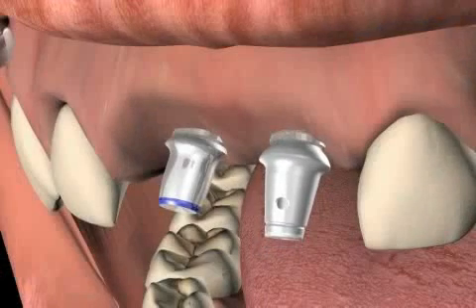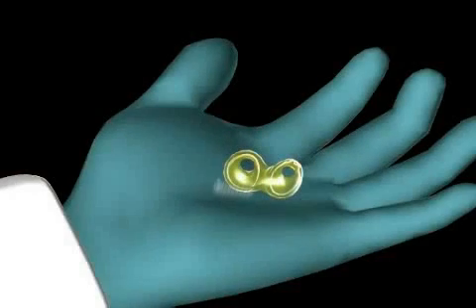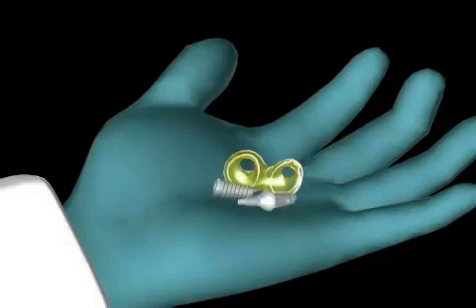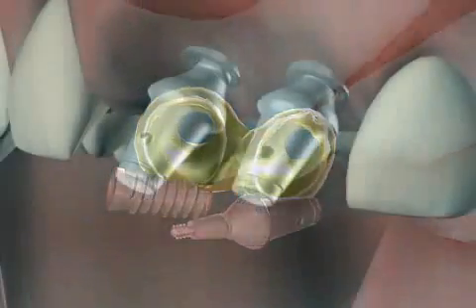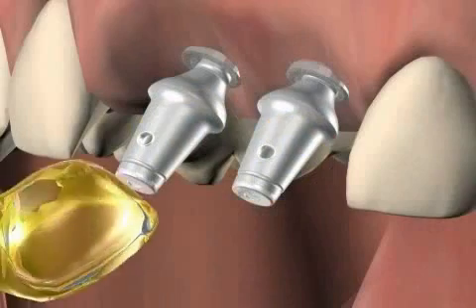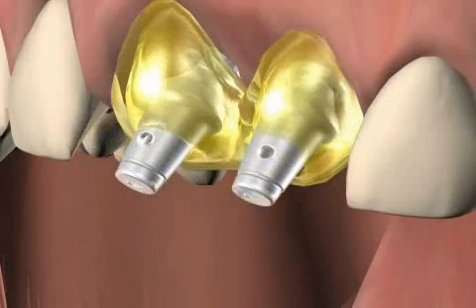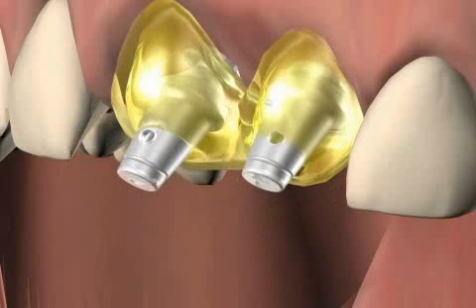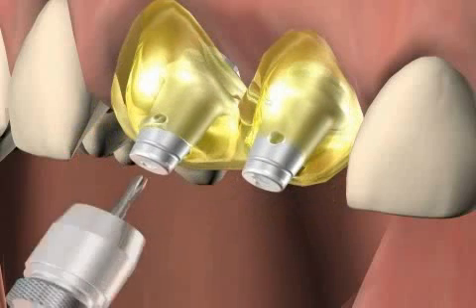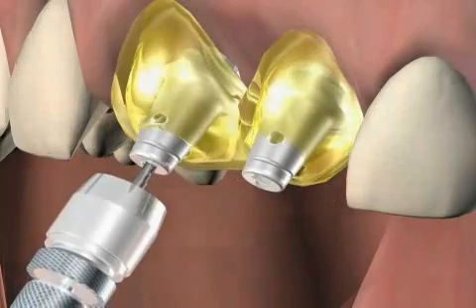However, handling is a bit more complicated because of the lack of anti-rotation protection. Without anti-rotation protection in the abutments, conical connections require the dental technician to provide the dentist with a type of positioning template that he can use to transfer the position from the plaster model to the patient's mouth, so that the abutments are screwed into the correct position at the implant.